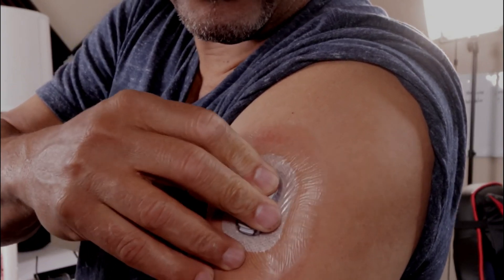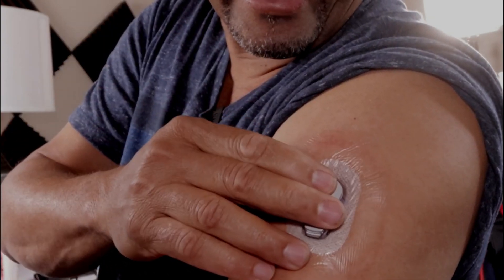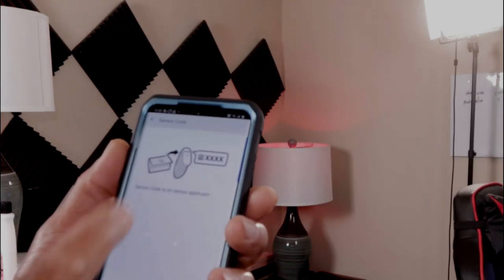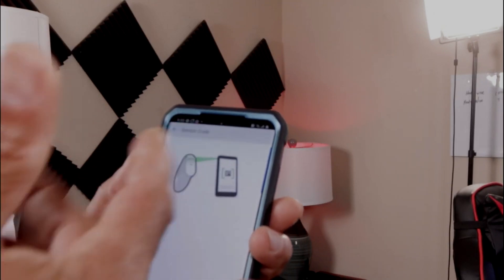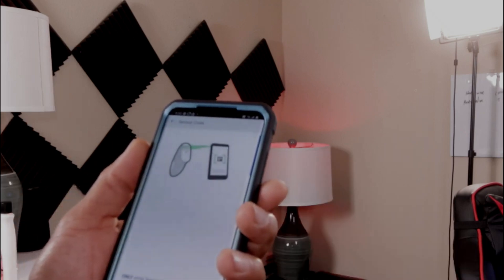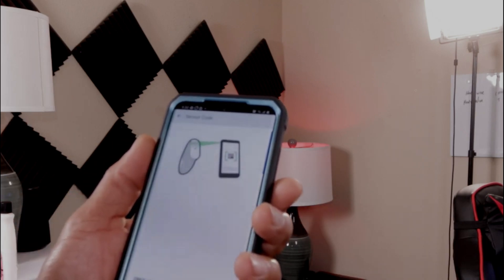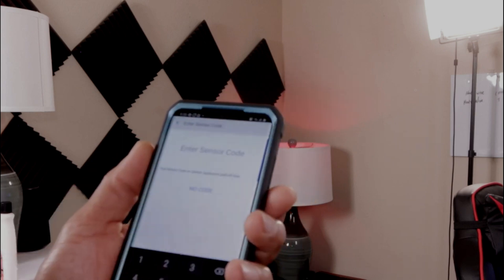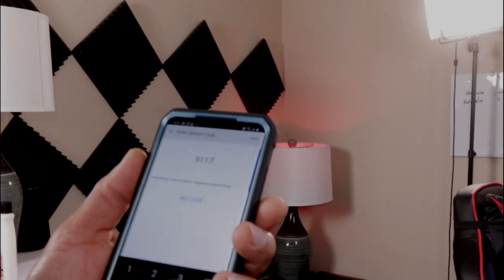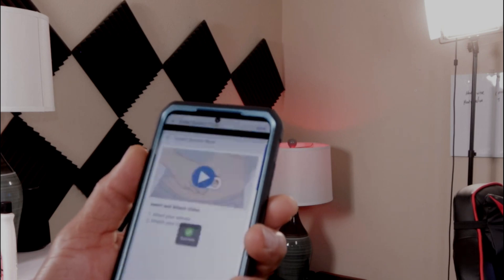After about five minutes, put it back in and press it down — you will hear two clicks or one big click. Make sure it's pressed down. That's basically it. Your Dexcom will prompt for a new sensor and the code. Make sure you have your old code saved. Enter it manually — I think mine is 9-1-1-7. Confirm.